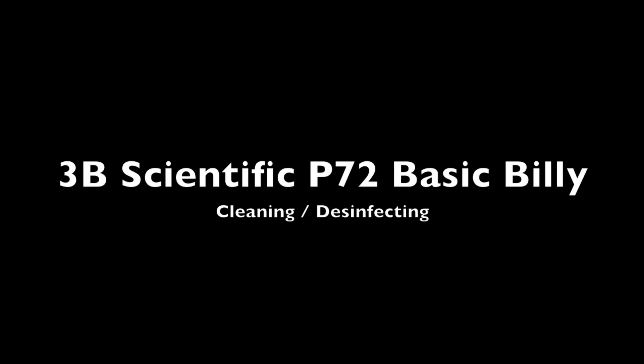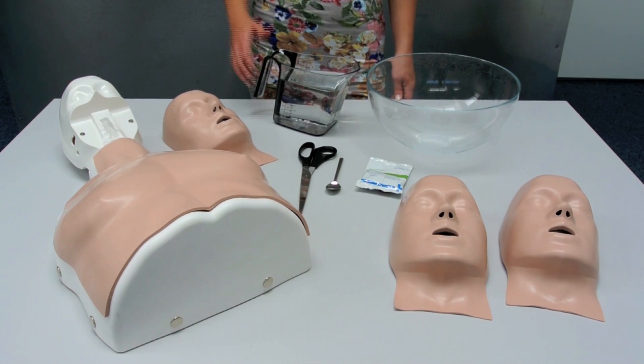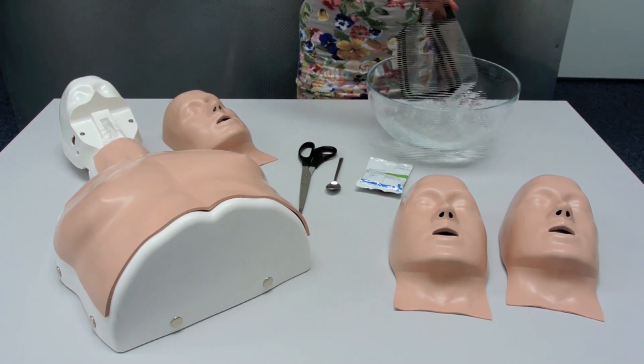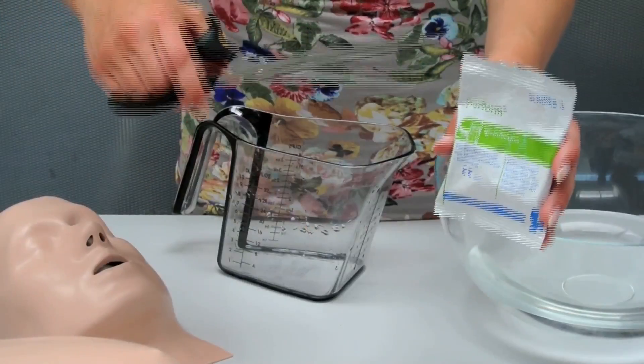Cleaning and disinfecting BasicBilly. Add cleaning solution to warm water.